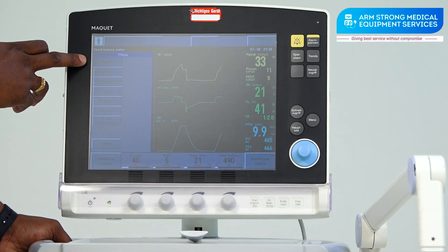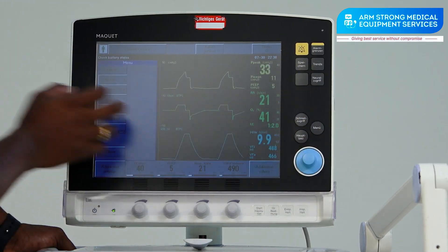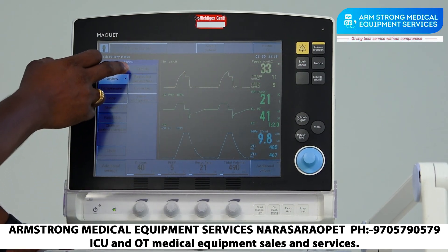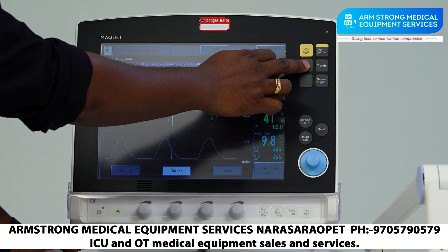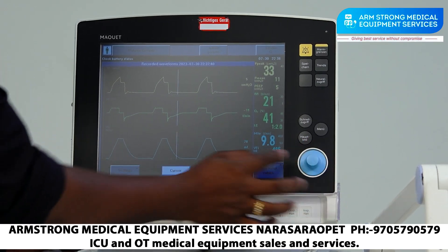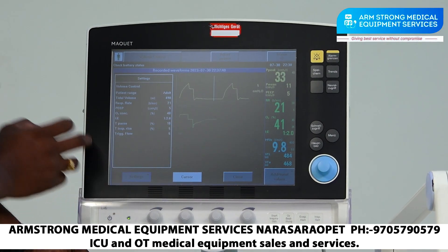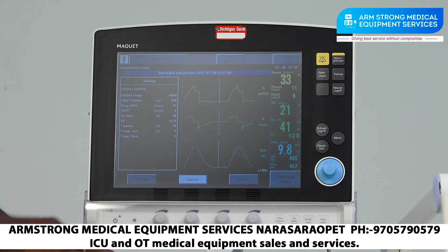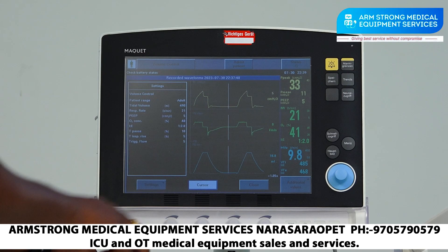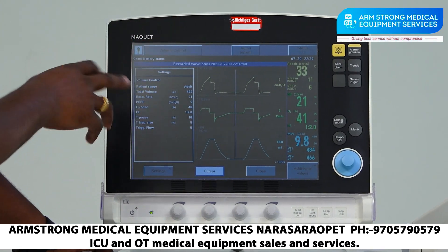In the Menu we have alarm, alarm profile, alarm history, and alarm mute — the same functions available via the buttons. In Review, we have recorded waveforms and a Snapshot feature. When you press Snapshot, the recorded waveforms with time and date are saved. You can move the cursor to see exactly when a change occurred in the waveform. If nursing staff observe something unusual and the doctor is not available, they can press Snapshot so the doctor can later review what happened to the patient.